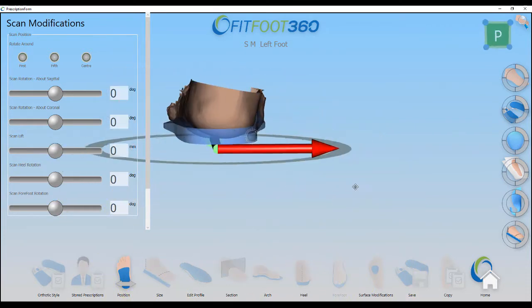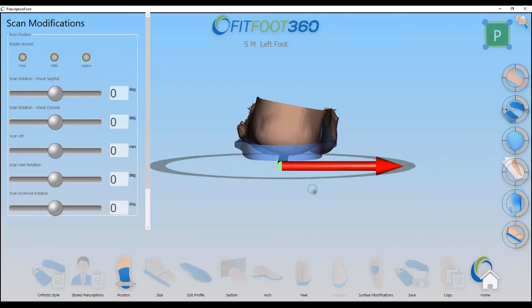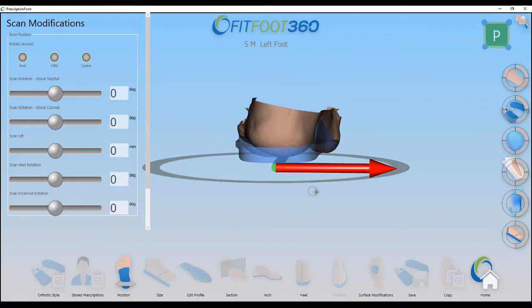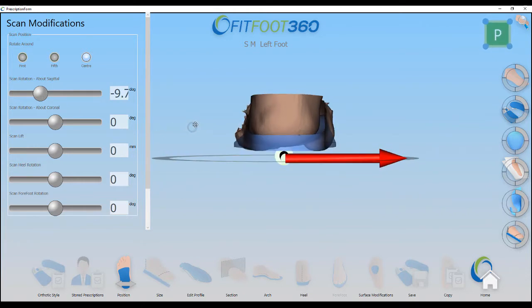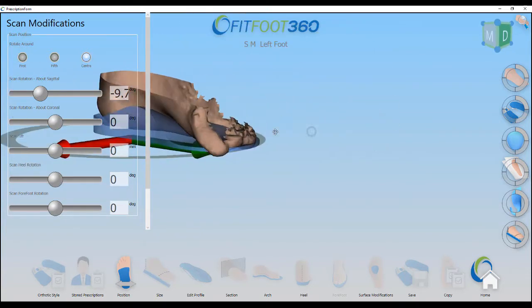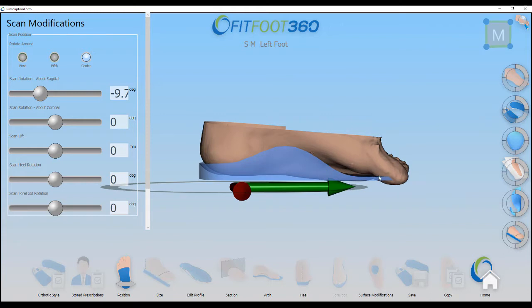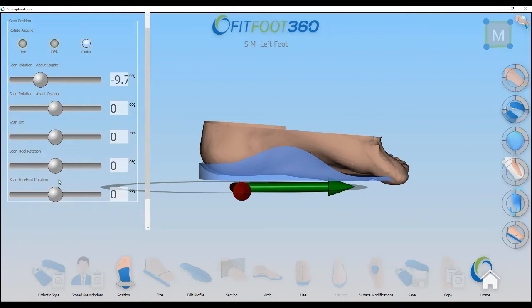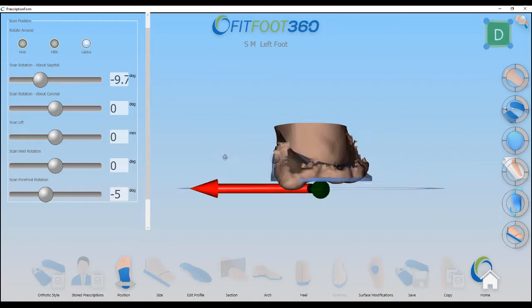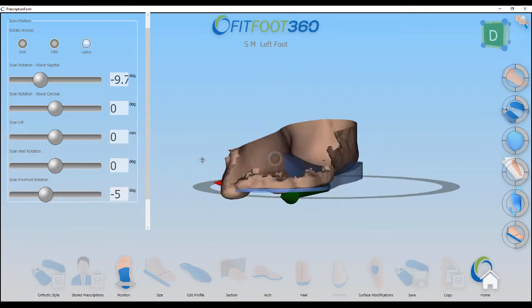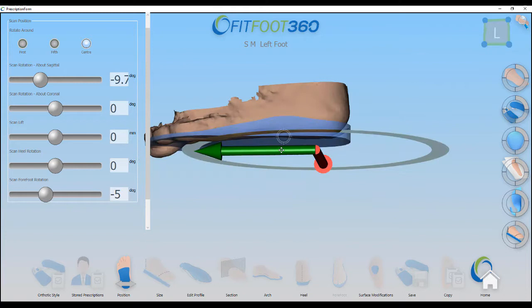Looking at the rotation, it's not too bad. Along the length of the orthosis the heel is relatively inverted, which is not the case in weight bearing, so we bring that back up roughly to vertical. Looking at the forefoot-to-rearfoot relationship, in weight bearing the hallux is still plantarflexed but the forefoot can get to the ground slightly more than shown, so using the conformity variable we rotate that back in a little bit. The scan is then sitting a little bit low so we bring that back up.